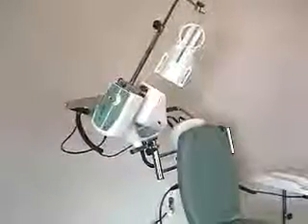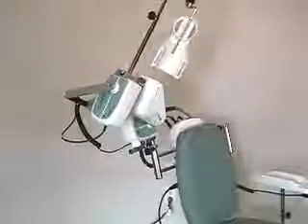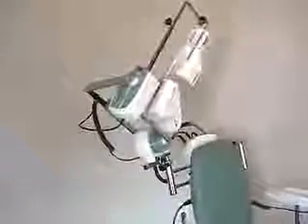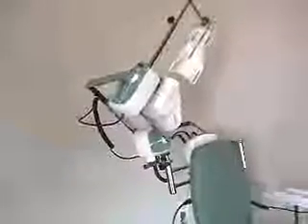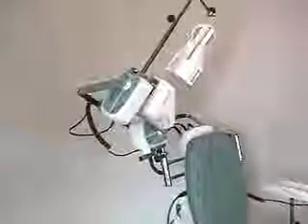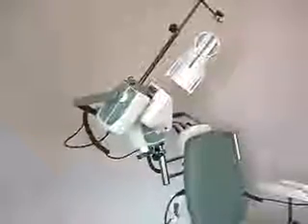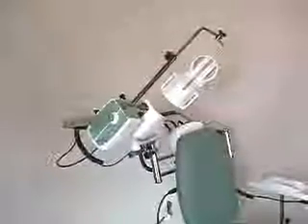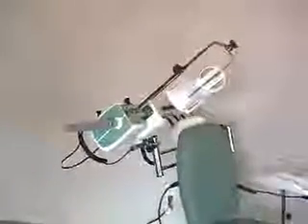You would have to either leave your rotation values there or increase your abduction and adduction values. Generally, the rotational value is lower than the abduction and adduction value. In that case, the abduction range will be complete and the rotation range will occur at the upper end of the abduction. So you may have the bottom few degrees of abduction occur without any rotation, because it is a true one-to-one synchronized motion — for every degree of abduction, there would be a degree of rotation.